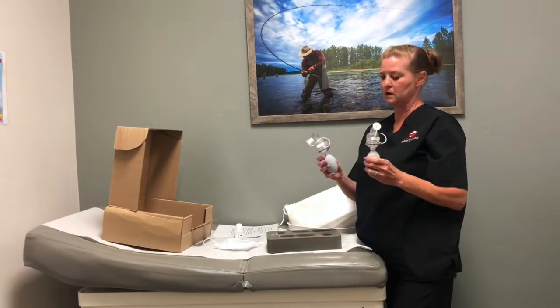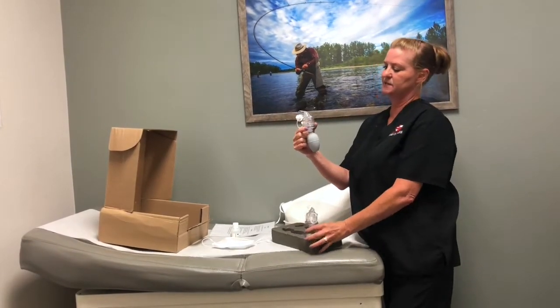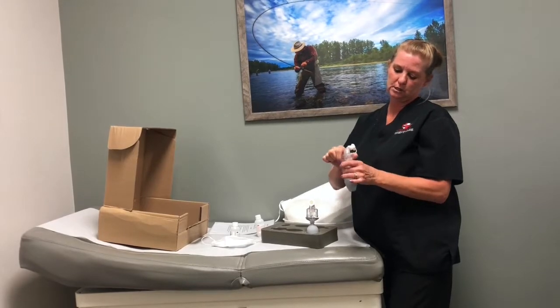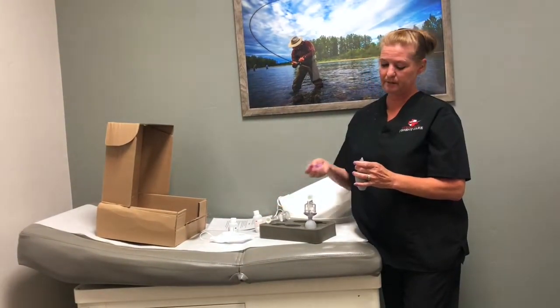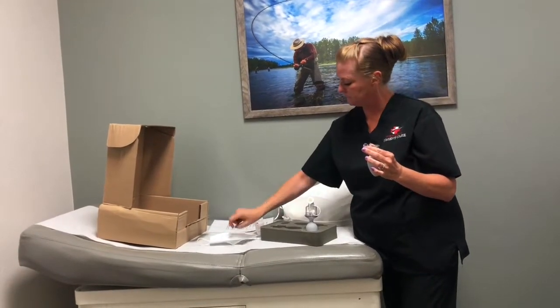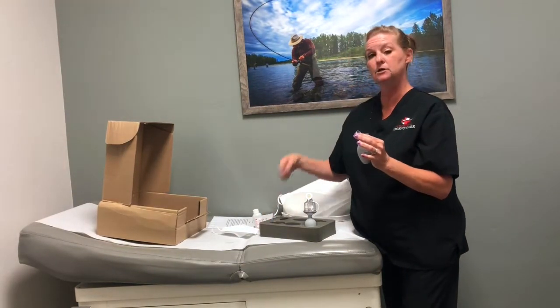Then you're going to have what we call nebulizers — not normal nebulizers like we usually use. Number one is red. It's called a sensitivity test solution and it goes with the red label. This is like sugar water. You just pour about one teaspoon into the little bowl. This comes apart just like a nebulizer does — into the little bowl — and then you're going to put the lid back on. You want to make sure that you clean these well. There are little pieces that come with it just in case it's clogged. You have a little wire that goes right down the middle in that little hole. Make sure when you wash it at the end it's with really warm water so that the sugar doesn't crystallize in there and you get a good spray.